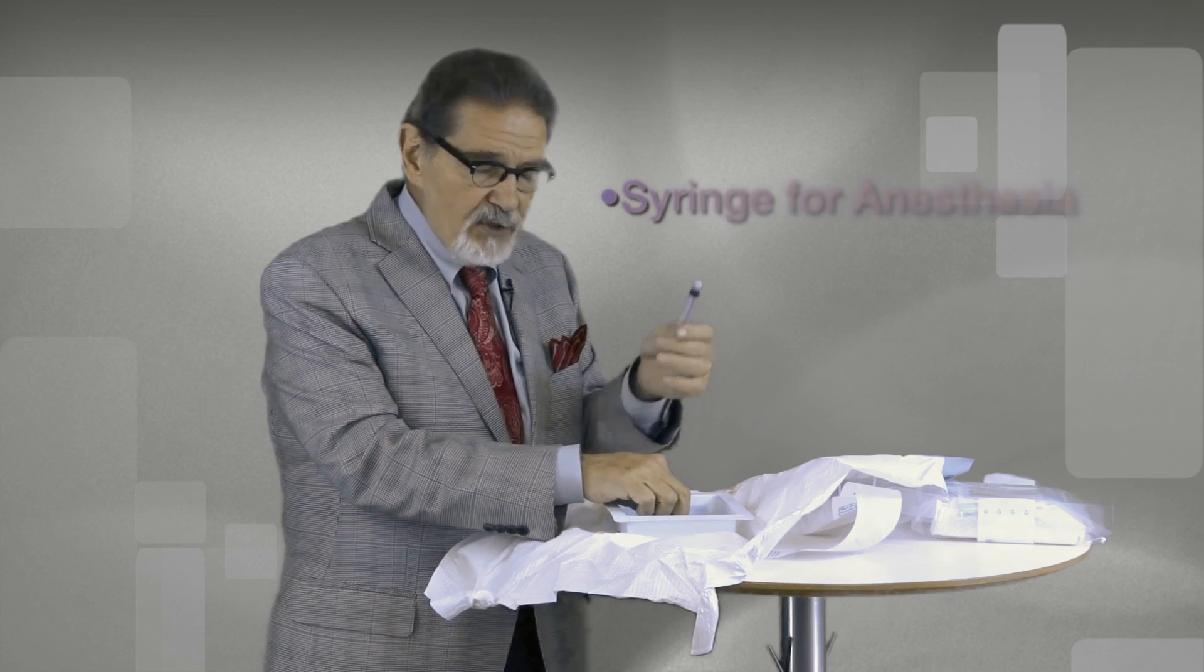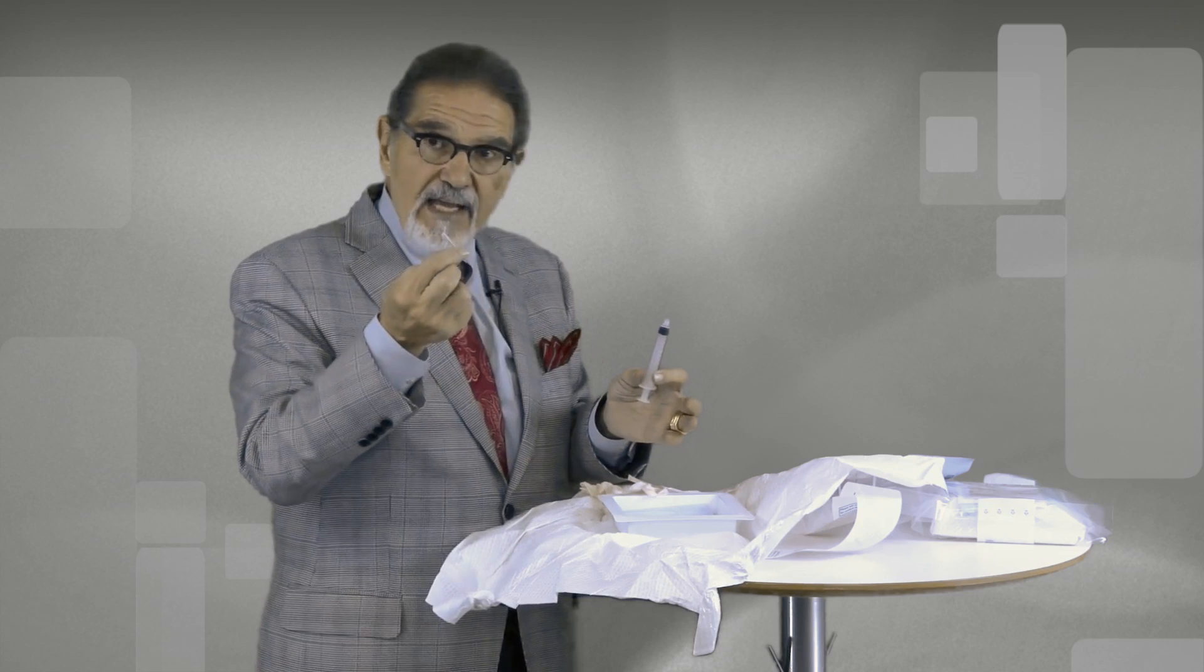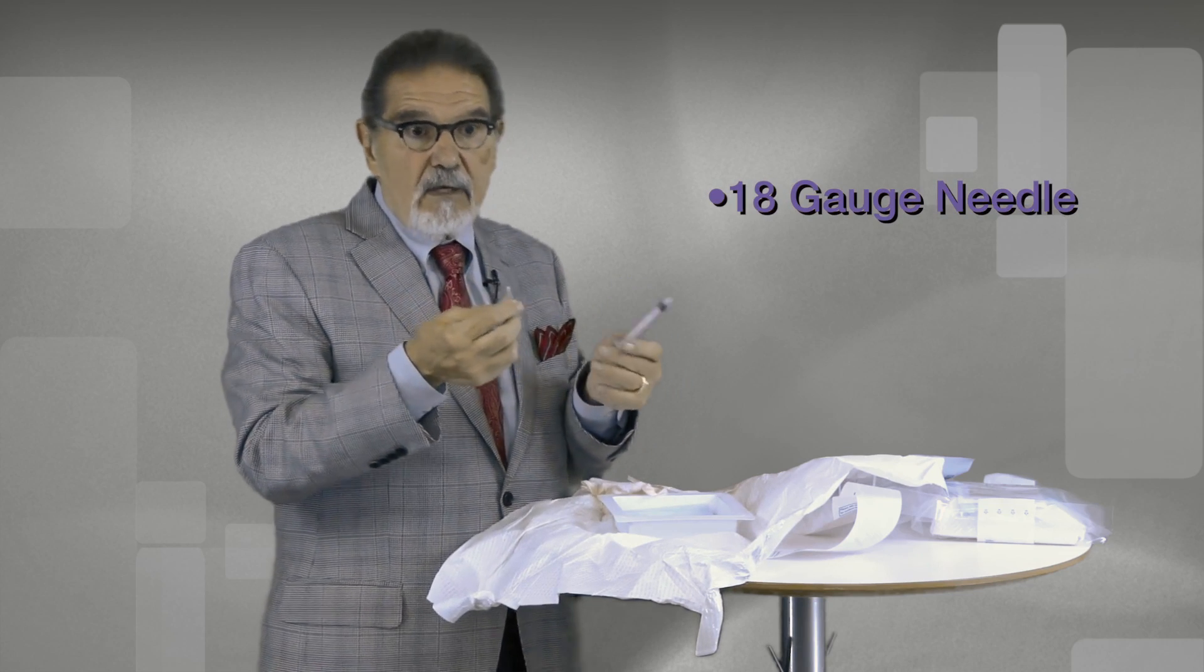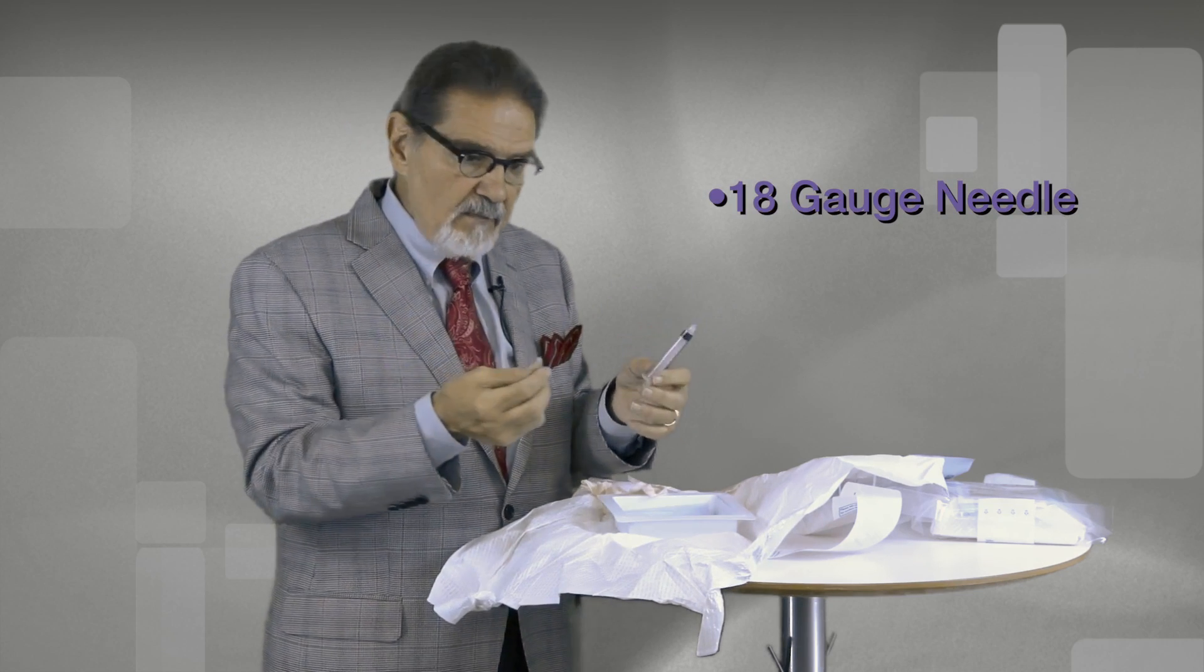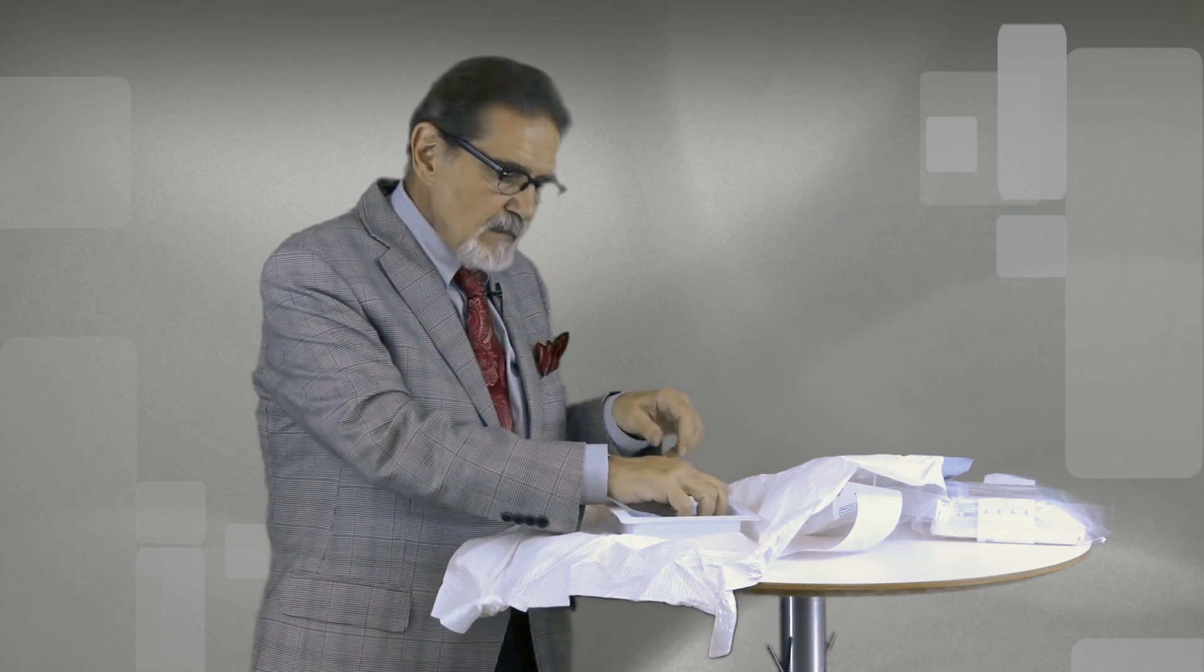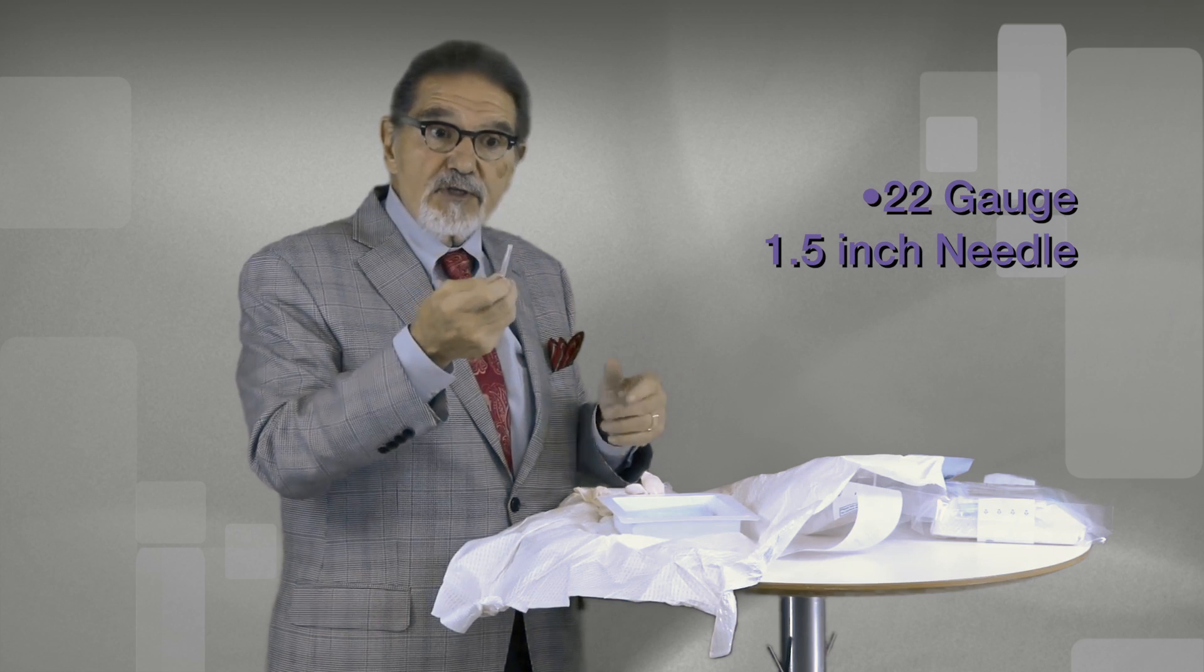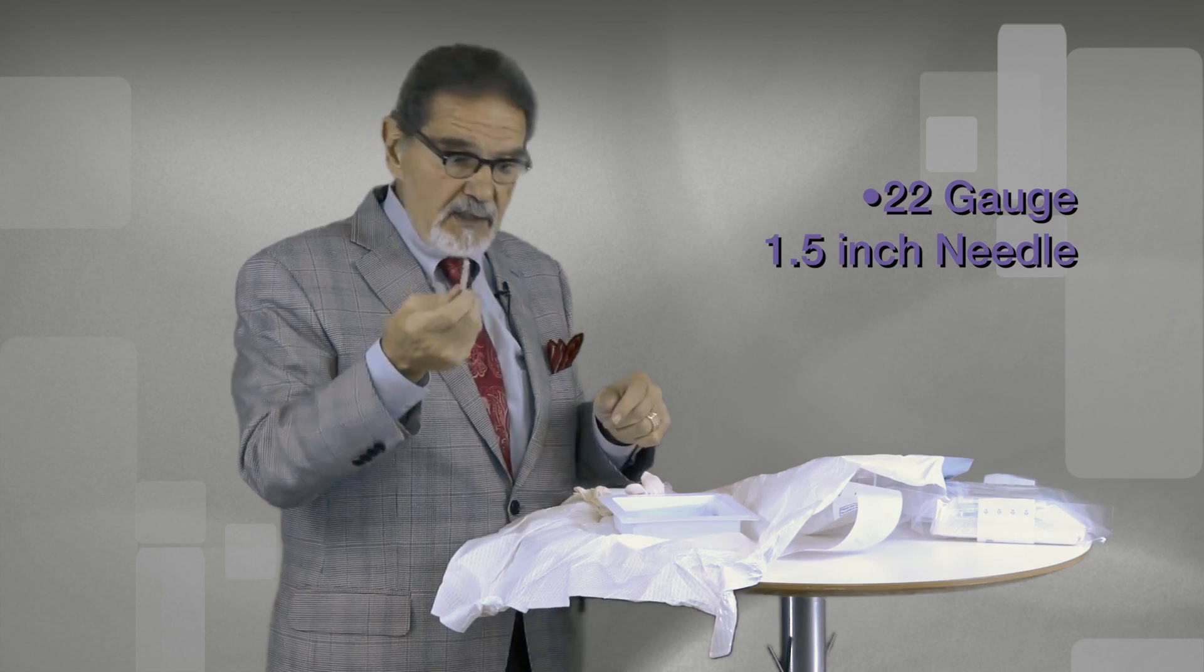You have a syringe to fill with your anesthetic of choice. The 18 gauge needle will help you facilitate that and make it easier for you to aspirate the anesthetic. We have a 22 gauge, one and a half inch needle for administering the anesthetic to the patient.